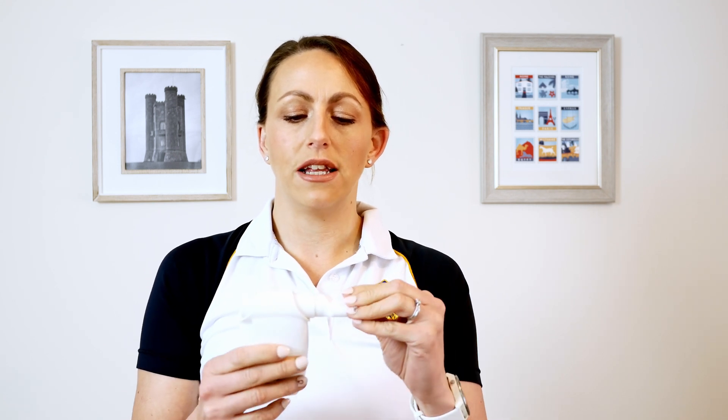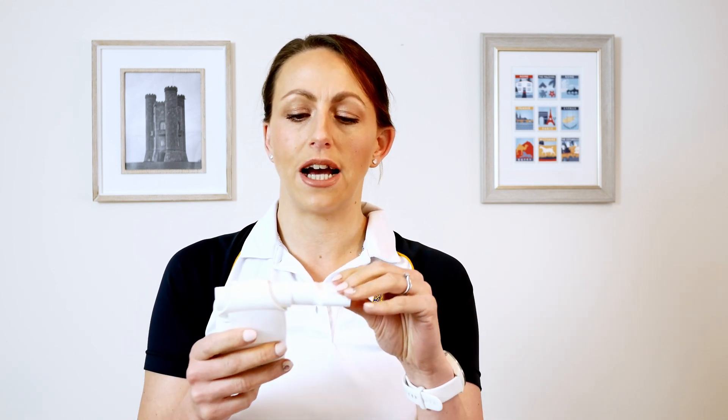Basically, what it is is a little tube with a mouthpiece attached, and you can take the bottom off. It's got this little flap inside. When you inhale or exhale through it, this flap moves and oscillates, creating different pressures. You can actually adjust those pressures, and the purpose is that when you blow out through it, it oscillates at certain frequencies to unstick and mobilise the secretions.